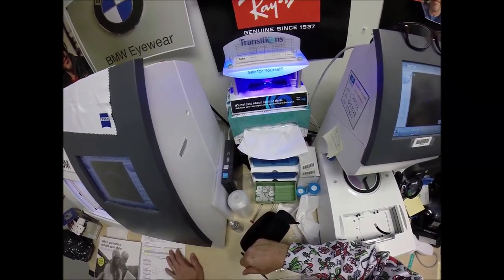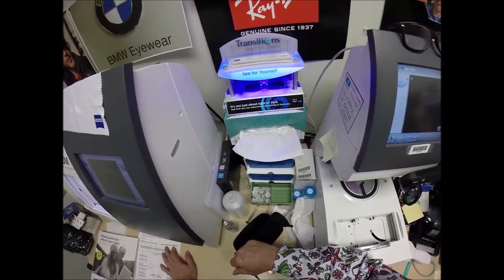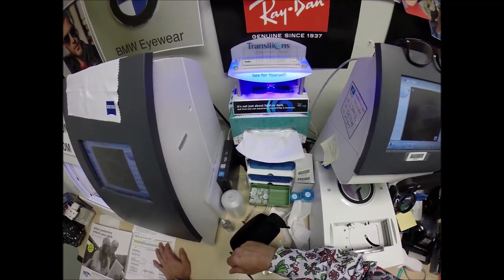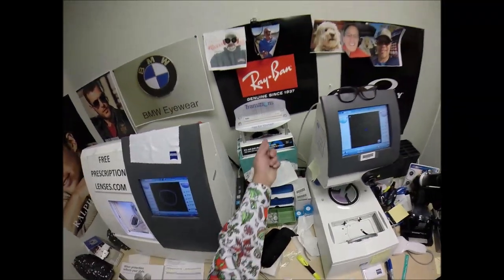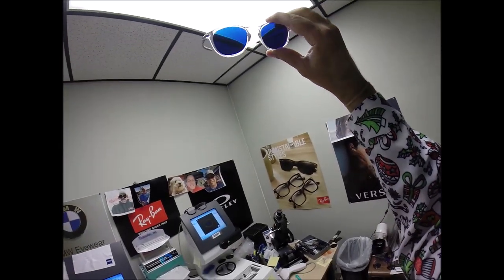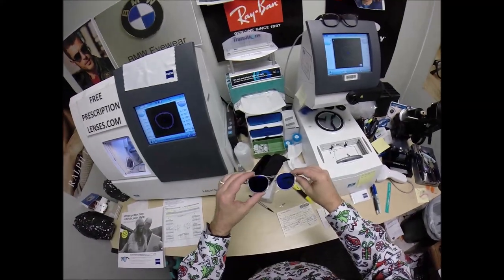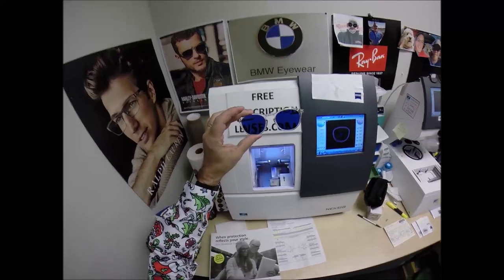The Photofusion and Zeiss Transitions 7 and 8 do not turn dark in a car. The Essilor Extra Active and Zeiss Photofusion Extra will get 30 to 50% dark behind a windshield. All photochromic lenses are temperature sensitive — they get darker at 85°F and below than at 95°F and above. As I keep talking, these are going to get lighter and lighter.